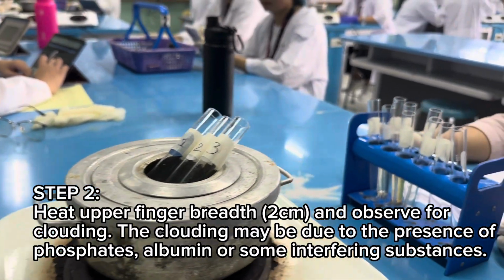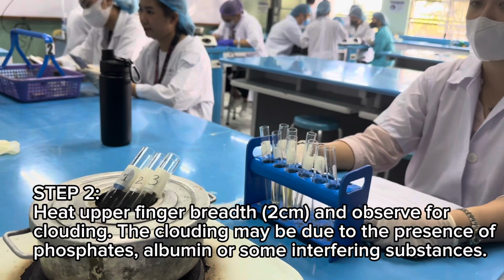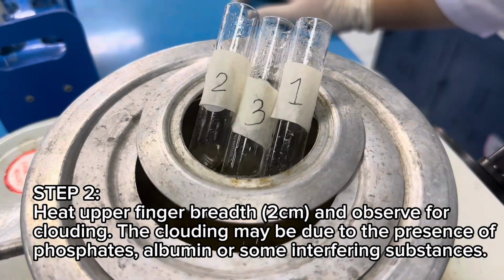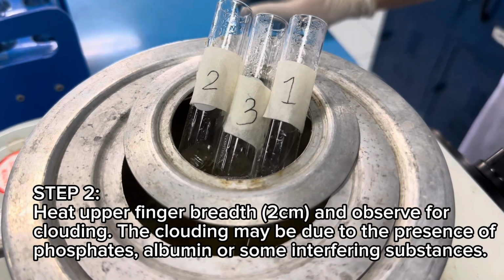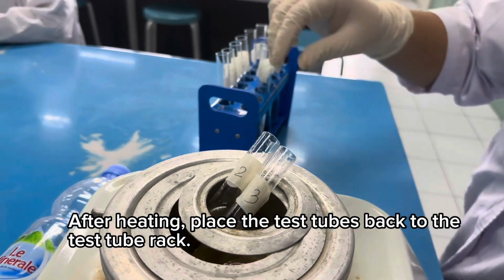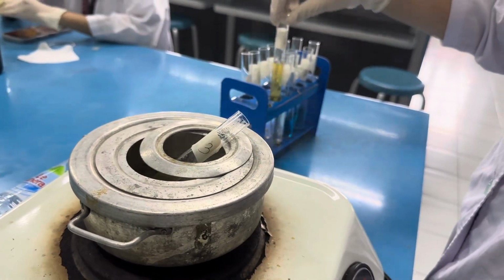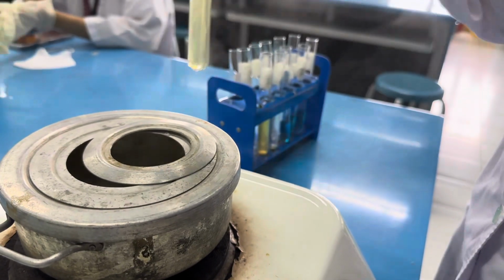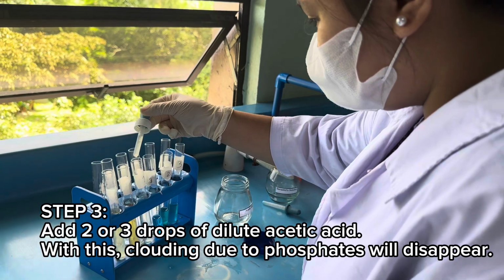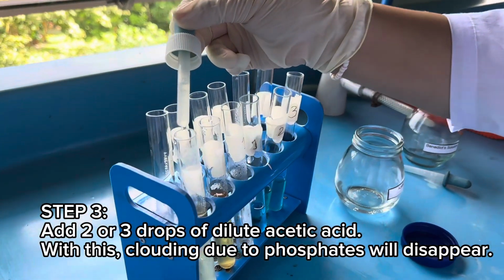Step 2. Heat the upper finger breadth of the tube and observe for clouding. The clouding may be due to the presence of phosphates, albumin, or some interfering substances. After heating, place the test tubes back to the test tube rack. Step 3. Add 2 or 3 drops of dilute acetic acid. With this, clouding due to phosphates will disappear.